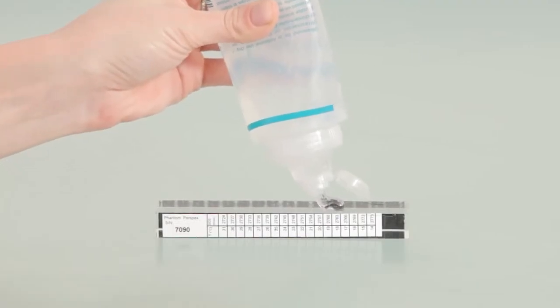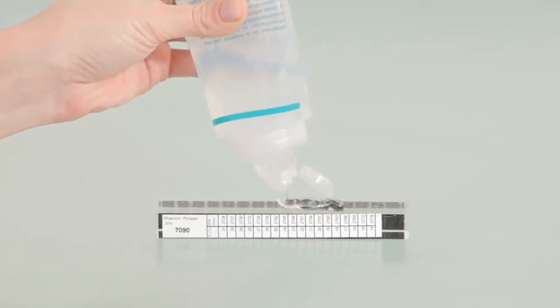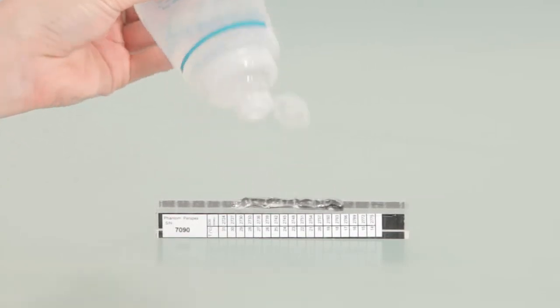Apply a uniform layer of ultrasound gel on the phantom. You are now ready to begin system quality verification using phantom measurement.